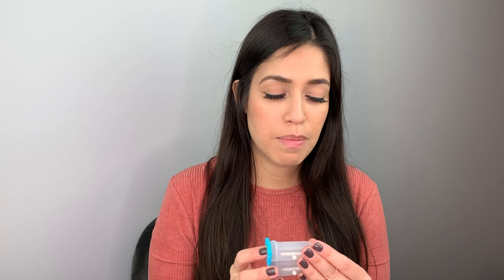These flex tubes will not be included with the container — they should already be included with your pump. Just keep in mind that you have to replace these every couple of months. I'll link it down below if I can find it, but yes, these are not included with the container.